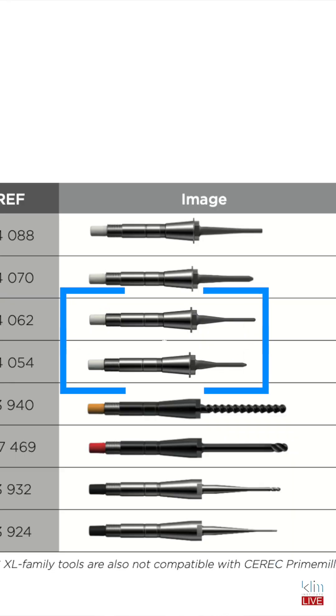There is an extra fine mill if your unit supports that. The prime mill will support the extra fine mill. You have your two main burrs — if you were doing fine mill, that does the initial mill, and then it completes the mill with really smaller tip burrs, and that's how you get a really good mill.